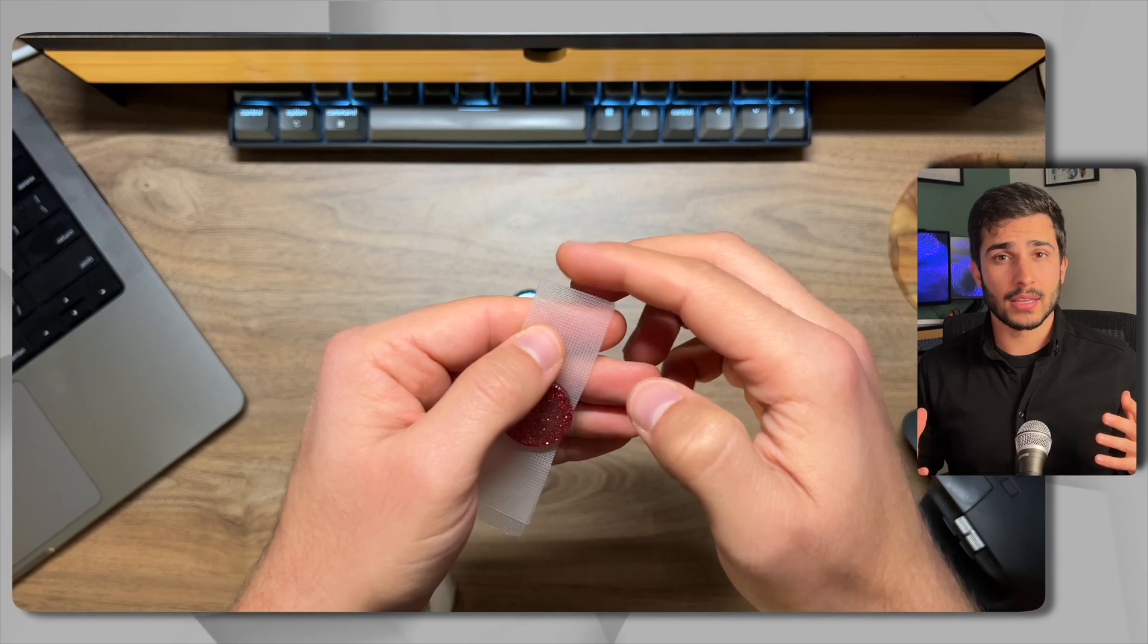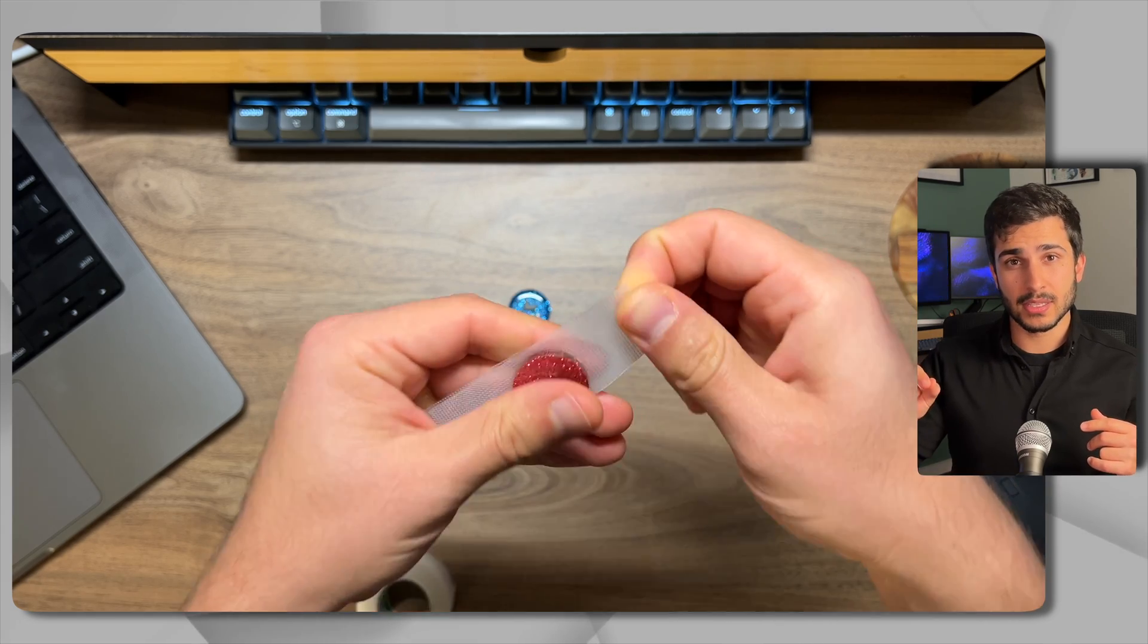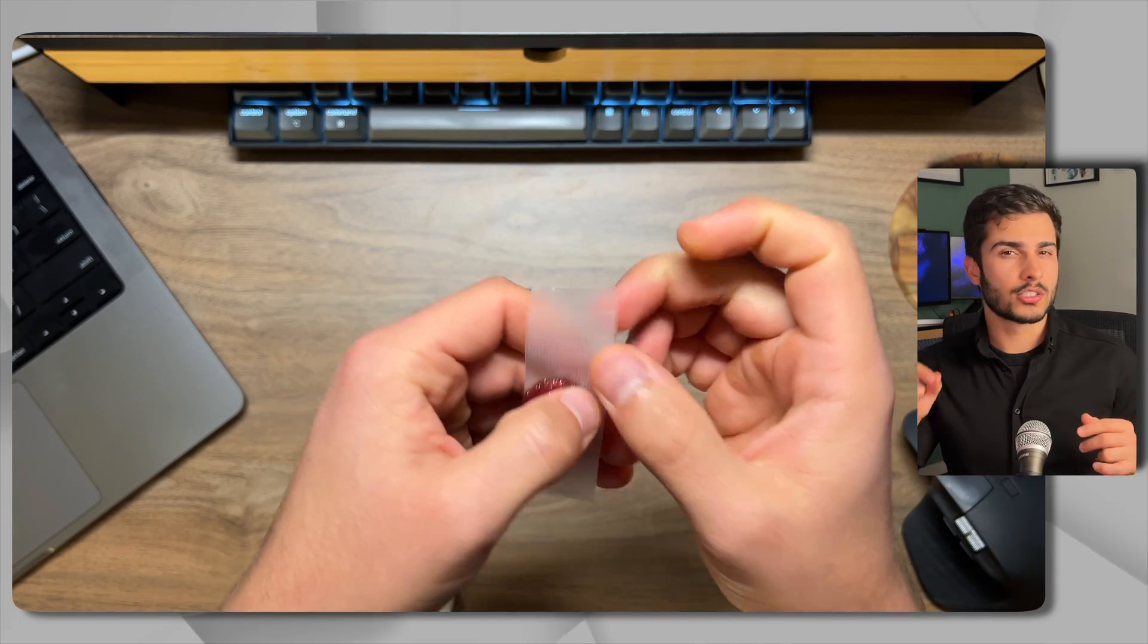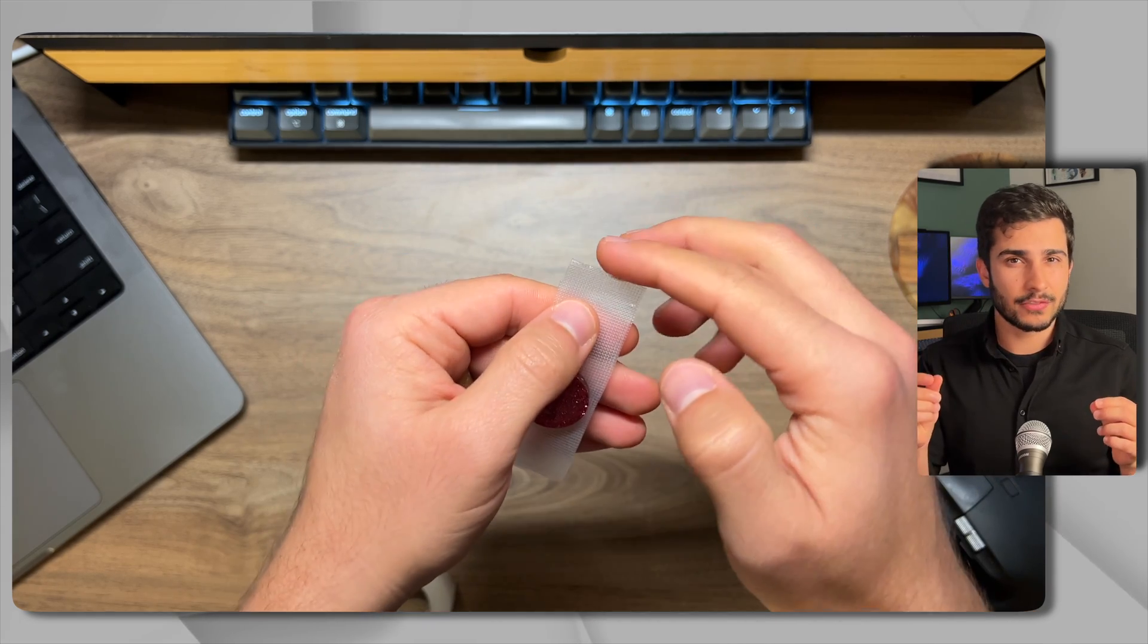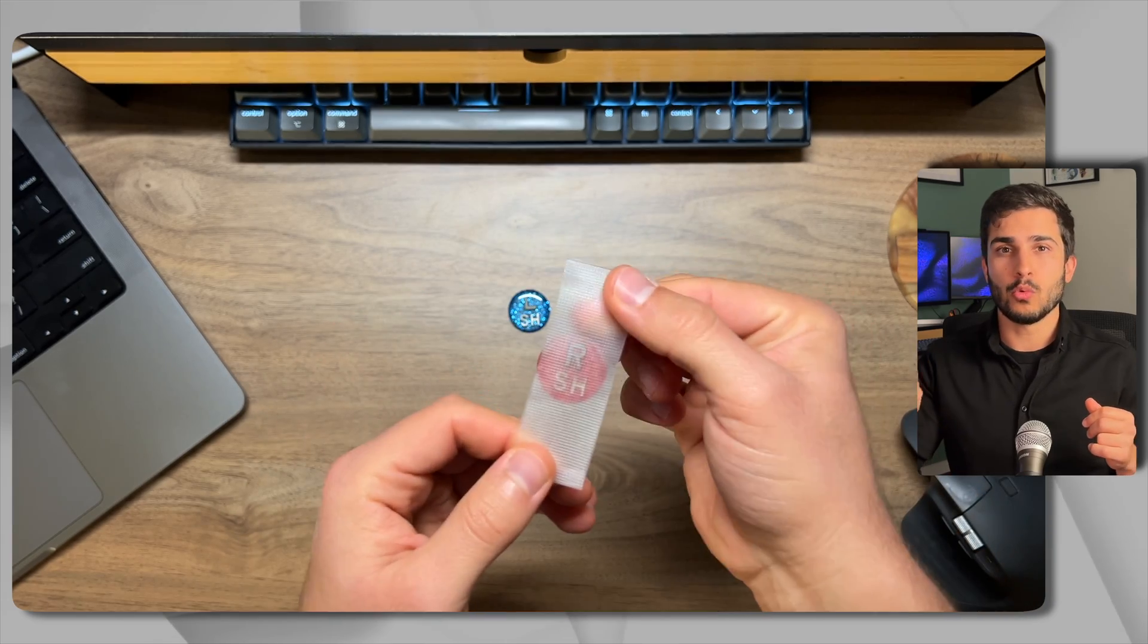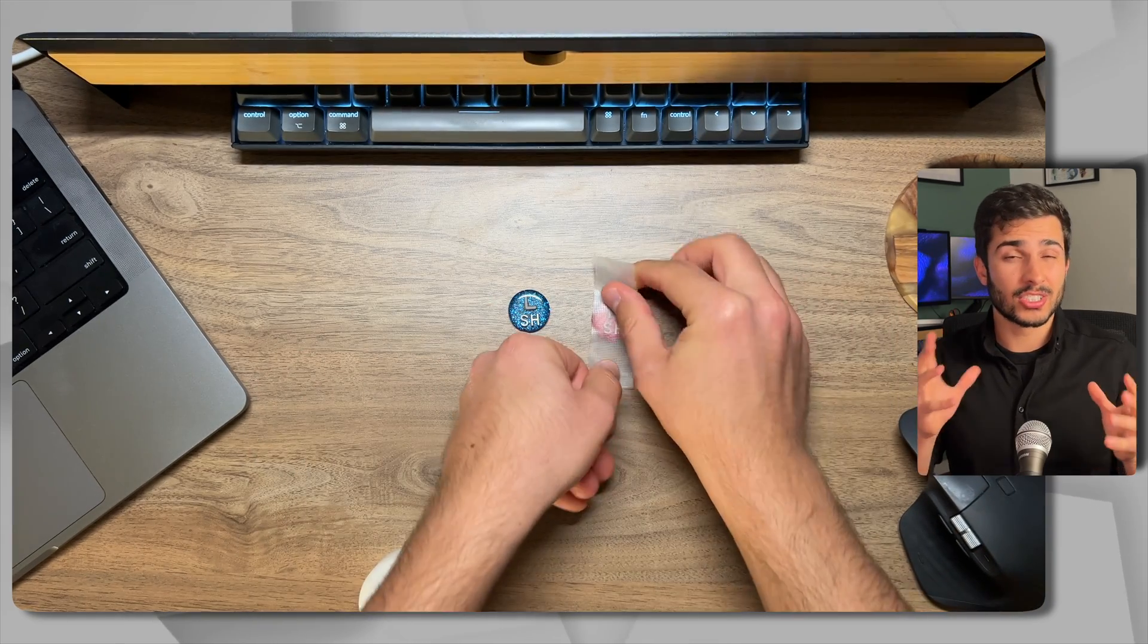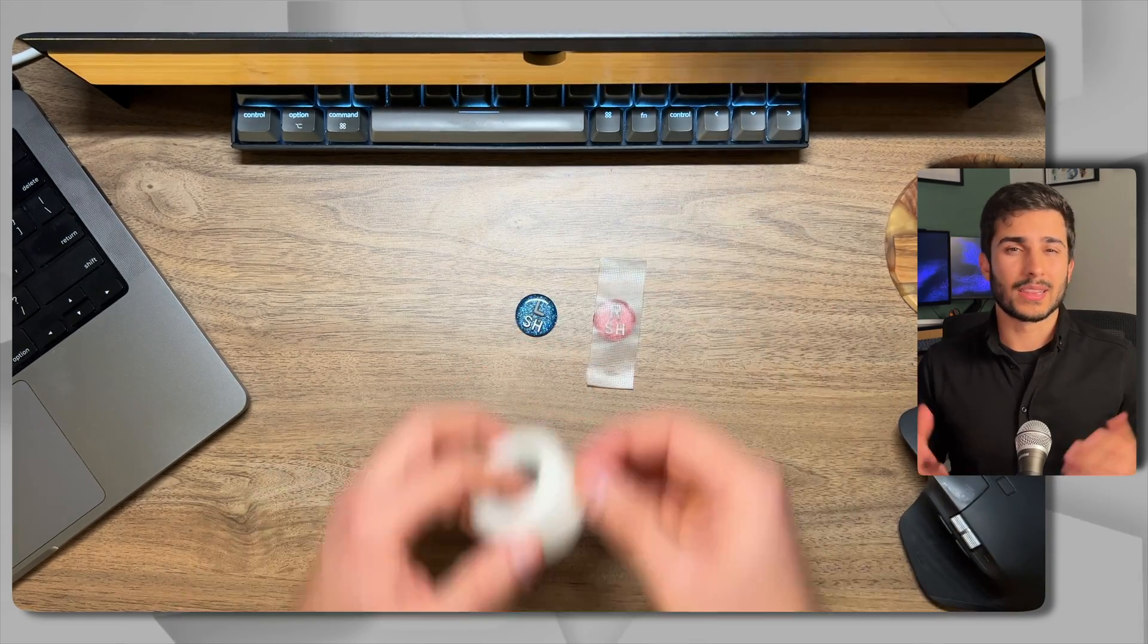And once you've done that then you want to fold in each piece and what this does is create a little edge for you so you'll be able to take your marker on and off without tearing it and really touching the sticky side.